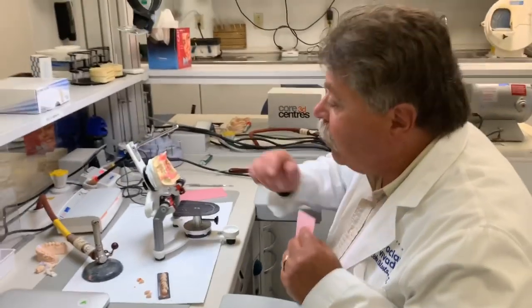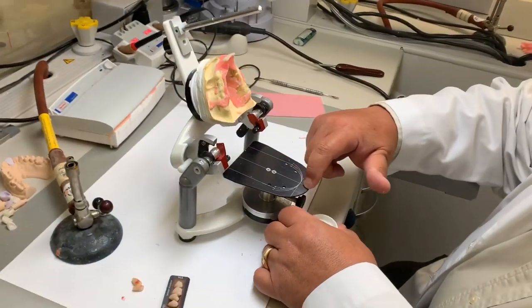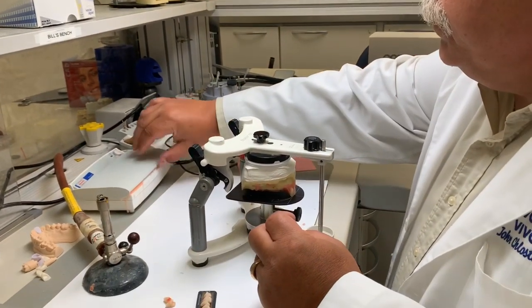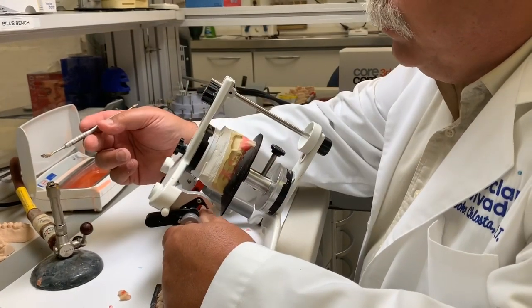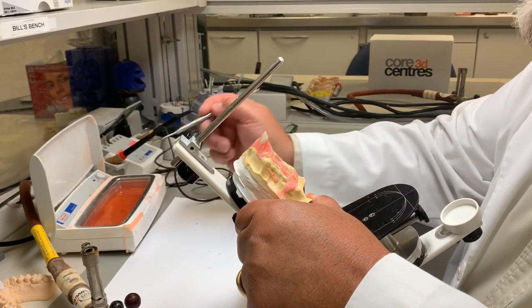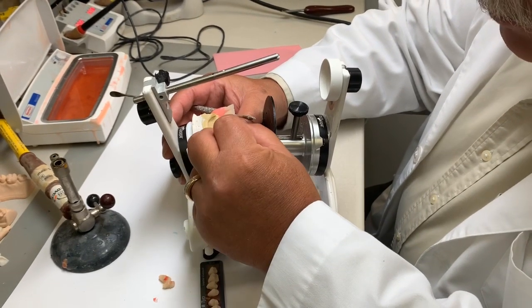All right. I'm going to start. I have two teeth set right now, and we have a setup table that helps guide us setting the teeth. This is our midline, the center of the face, and where the centrals will be. And as you see, they touch, and we're going to just start to set more teeth now. I'm going to take some molten wax and just create a little bit of an area to set my next tooth. I'm going to place it on the model.